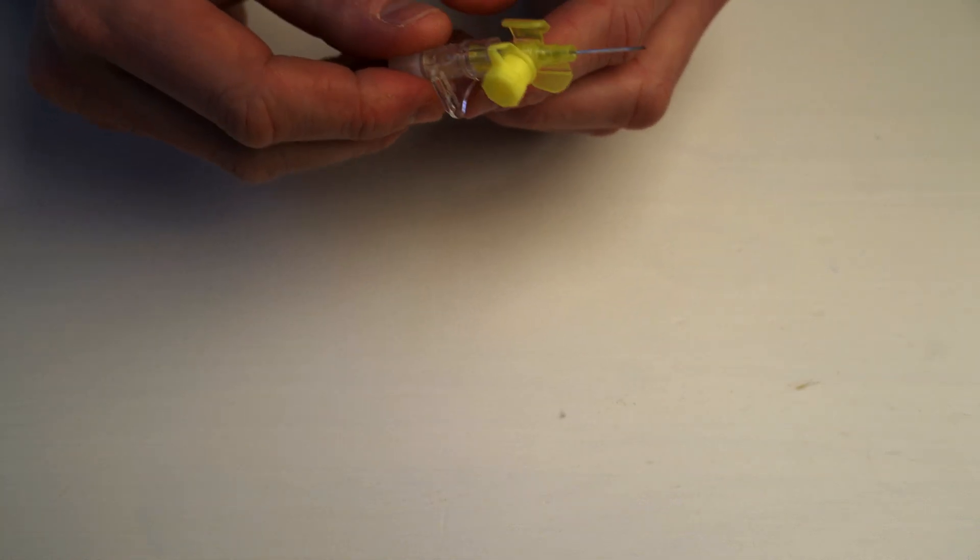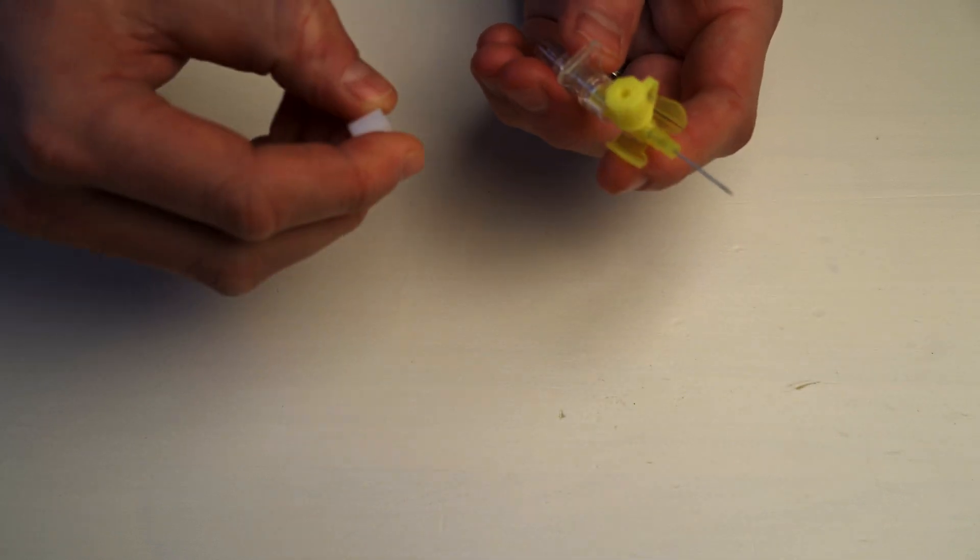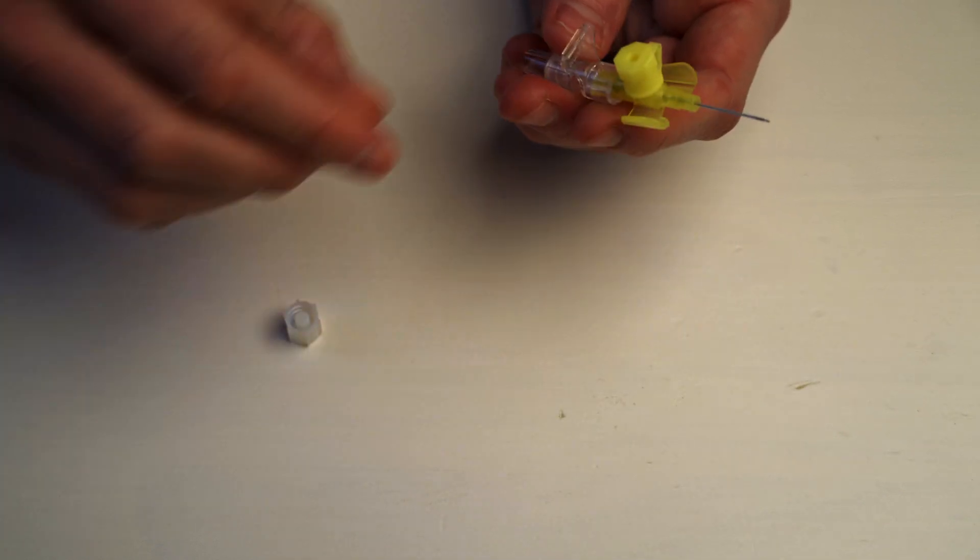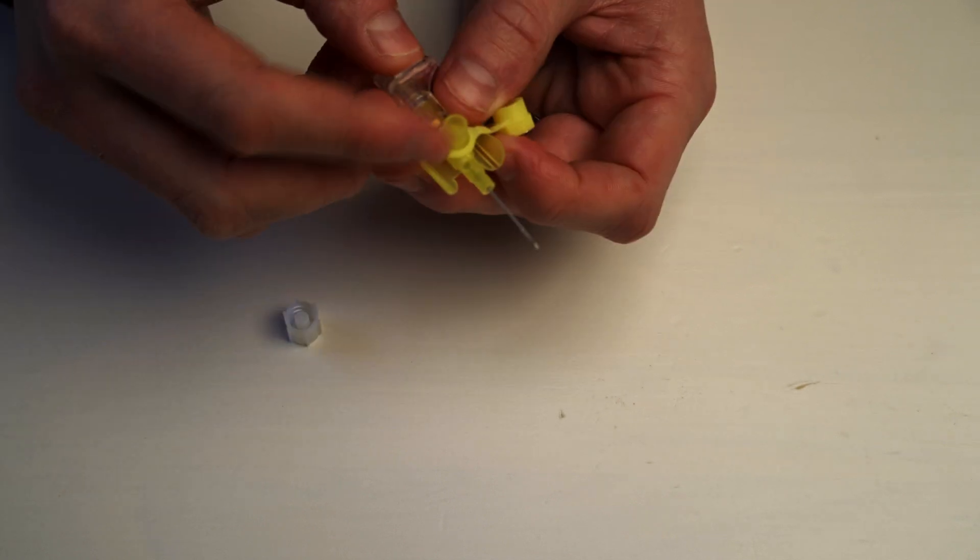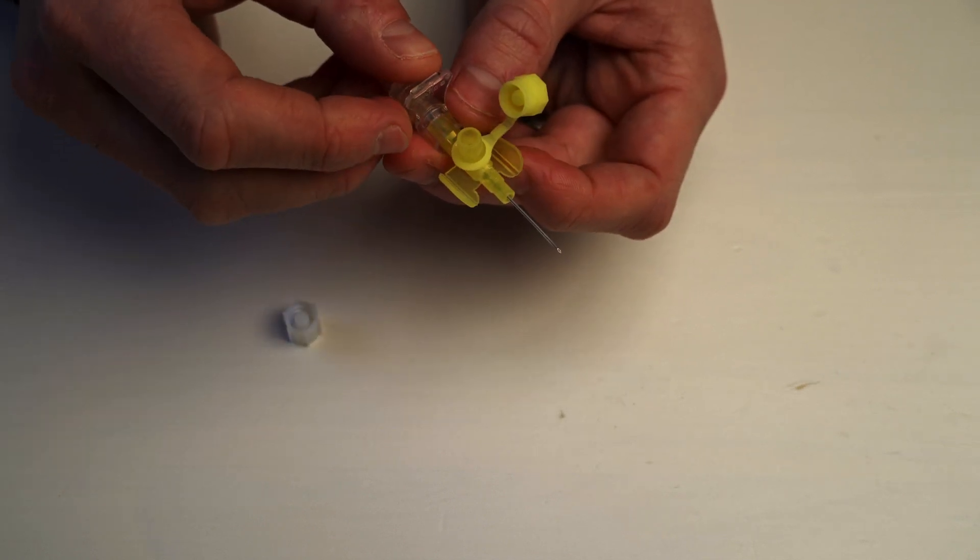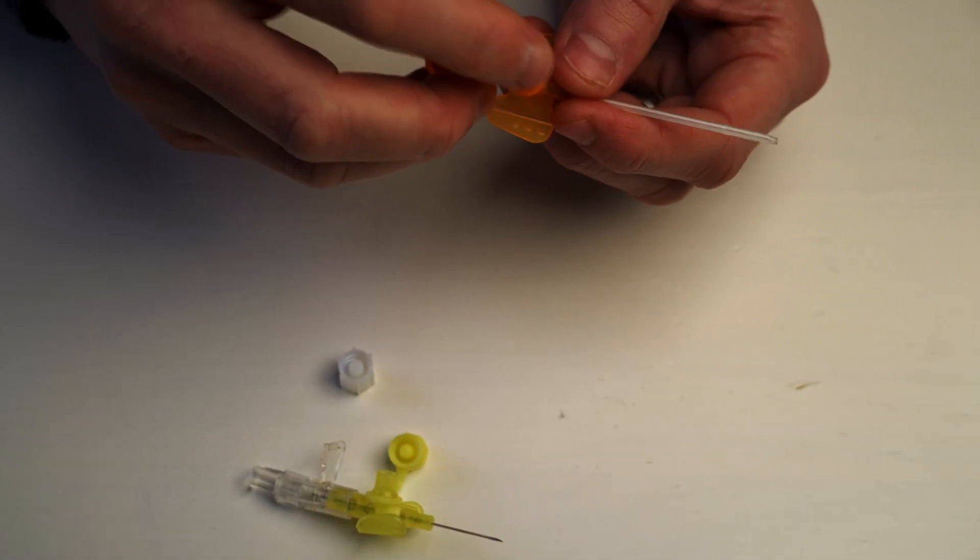This is the tiny one. So at the back here, you just have this little thing at the top here, which then can come off. That can be kept for later. I'll show you why. And then blood will still not come out the back. And then there's also this port at the top of this. This is where you can inject medication. So I'll grab the bigger ones. You can open this up and you can inject fluid into that.